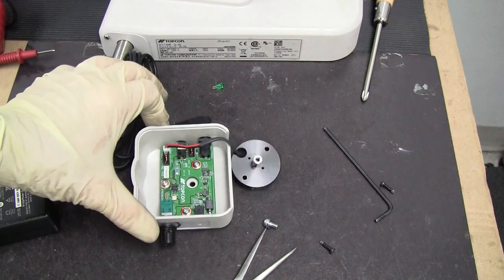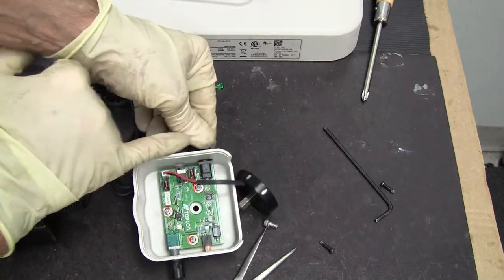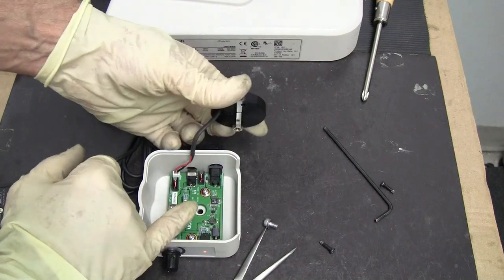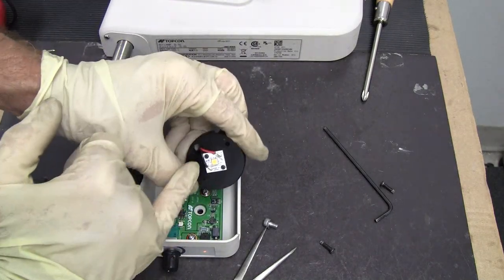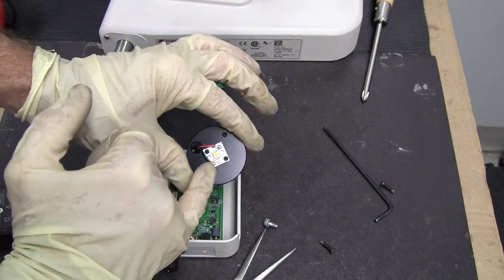There's telltale signs. If that doesn't come on, it could be your board if you know you're getting power. And if it's still not lighting up, it could be your LED itself.